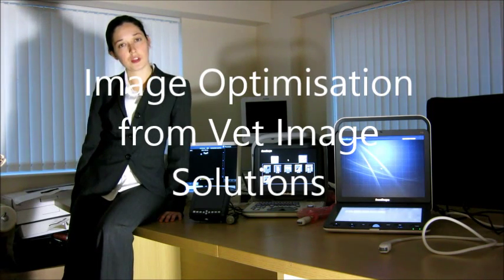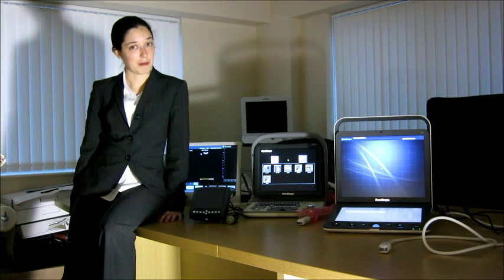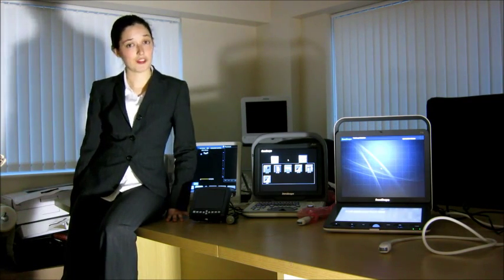This is going to be a short summary video on image optimisation. It's one of the most frequently asked questions of us. How do I optimise my image on whichever ultrasound machine you have? And it's one of the most difficult to answer because by adjusting one control you're always going to have a knock-on effect somewhere else. So it's really important that you understand all of your controls and what they do.